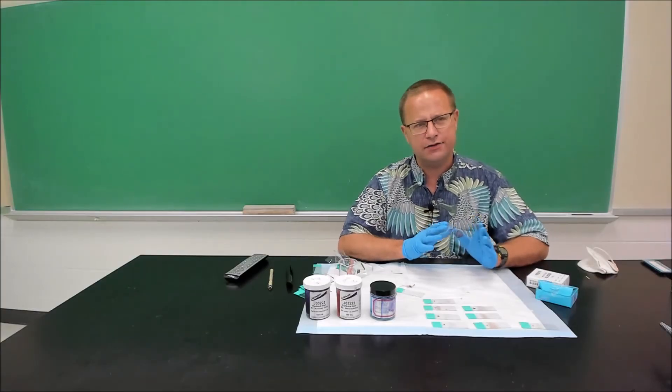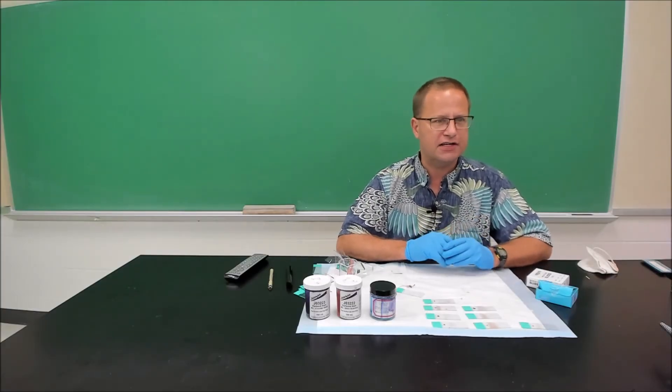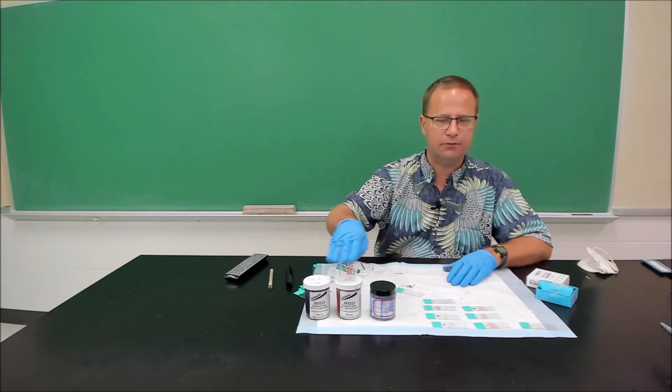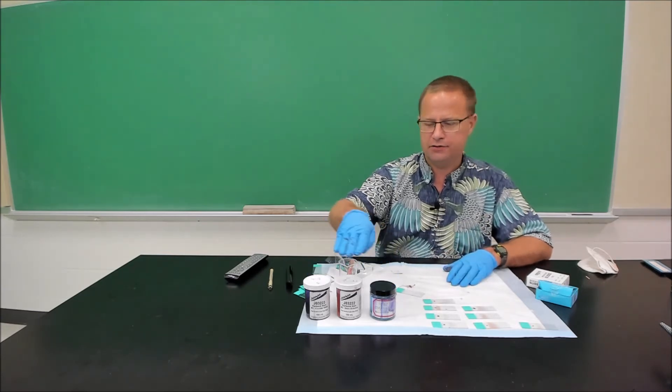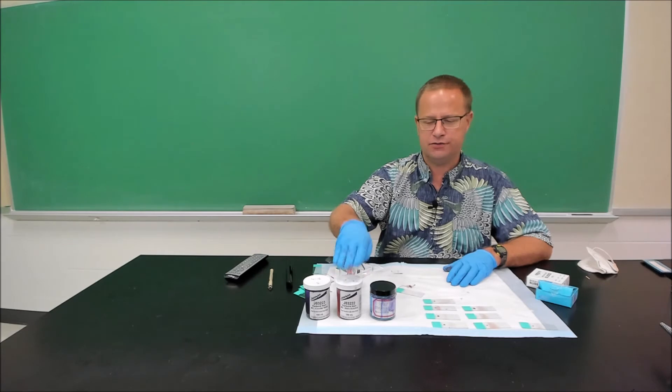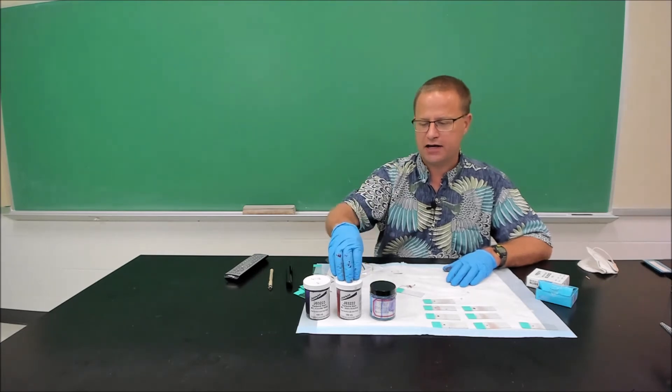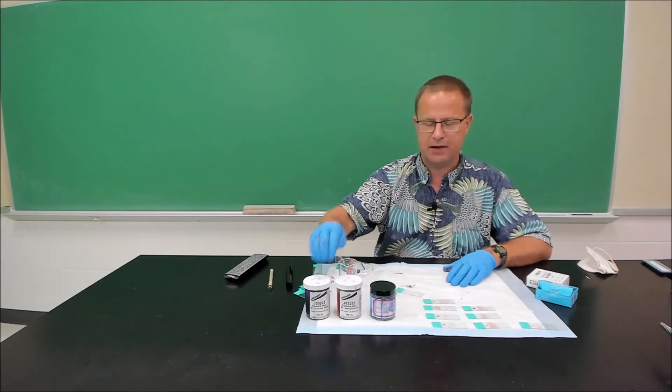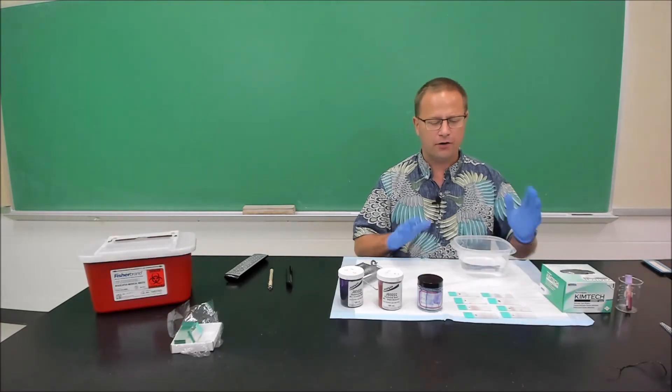So what we're going to do now is let those slides air dry for about five or ten minutes, and then we're going to come back and stain them with our three stains. Our methanol, which is our fixative, our eosin, which was our cytoplasm stain, and then we have our nuclear stain right here, which is our methylene blue.